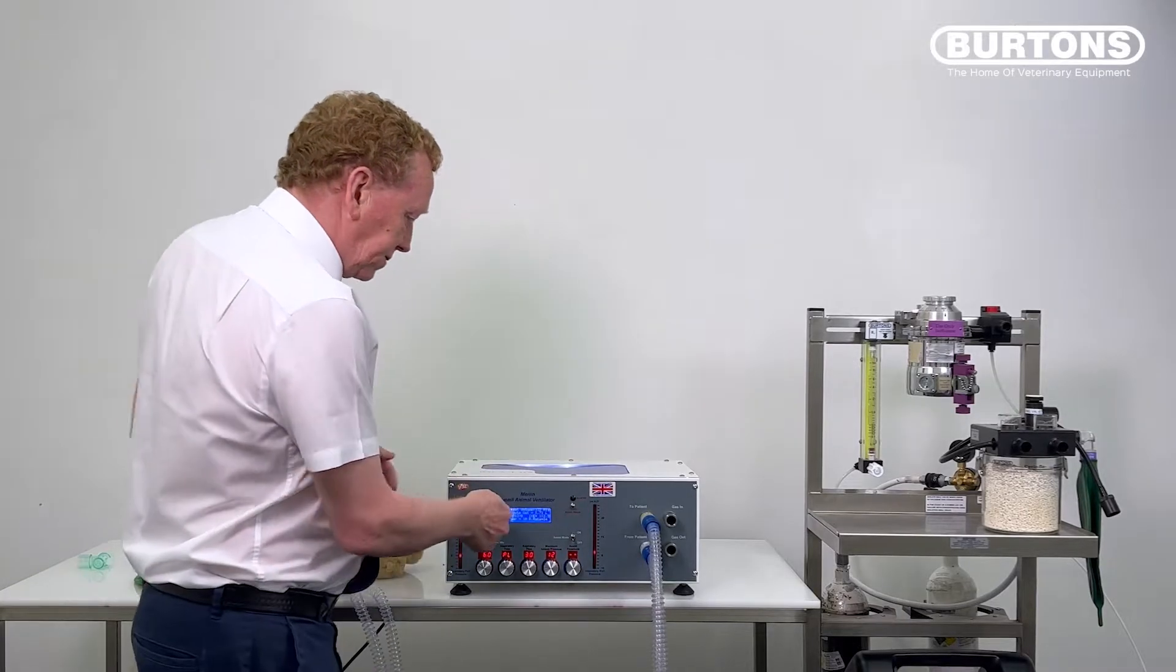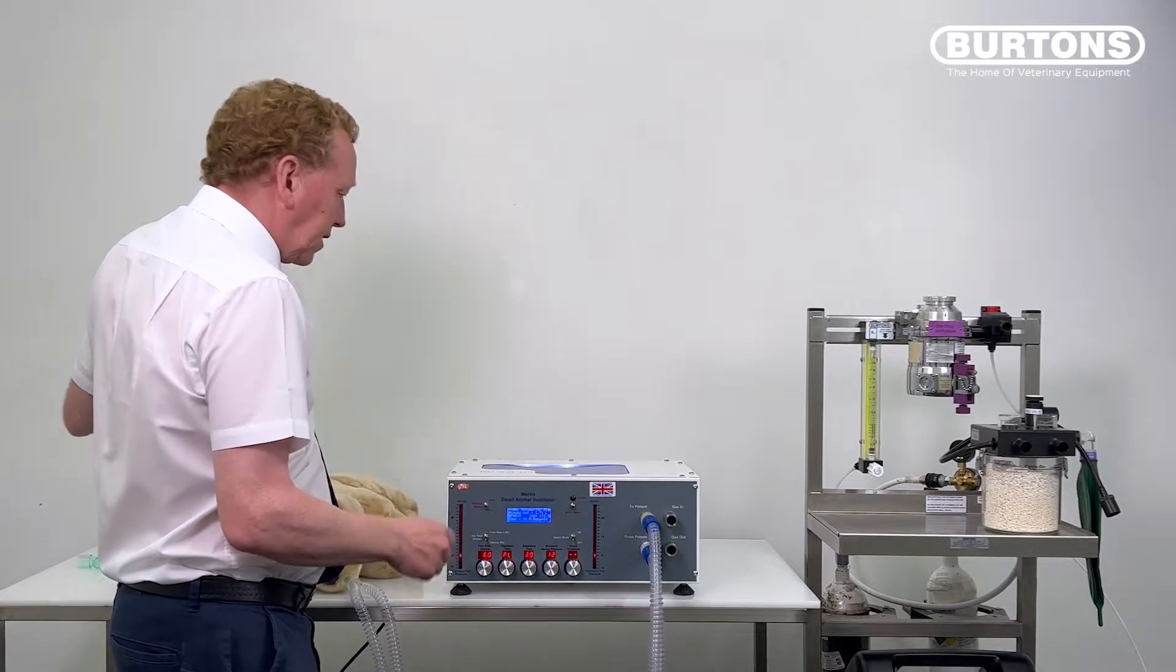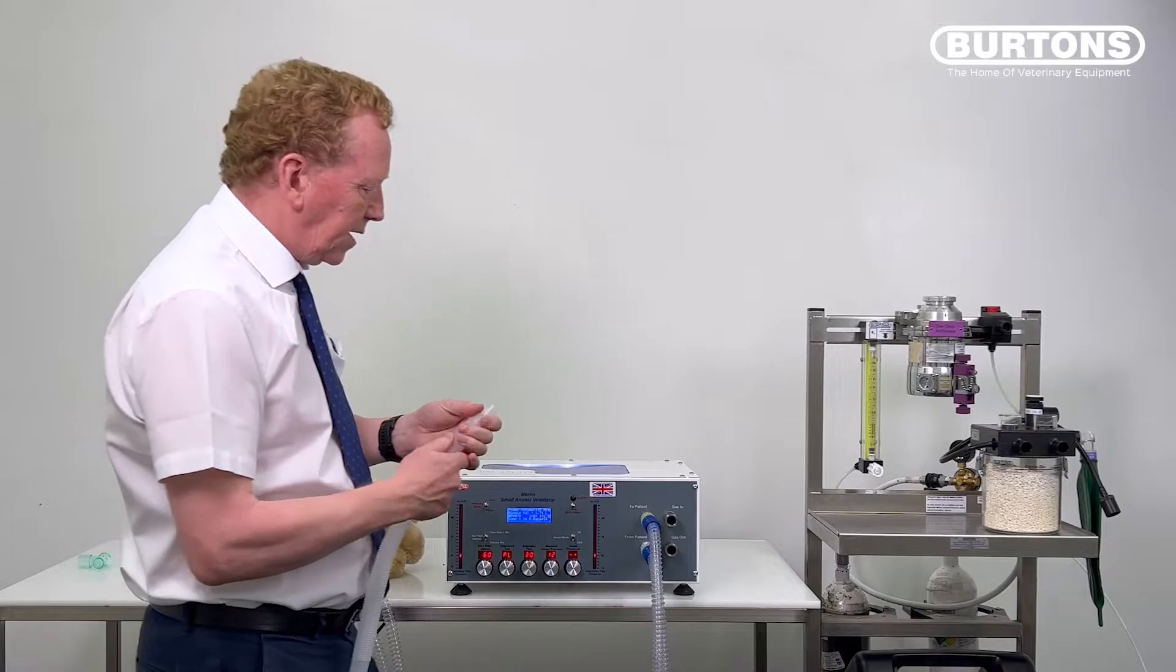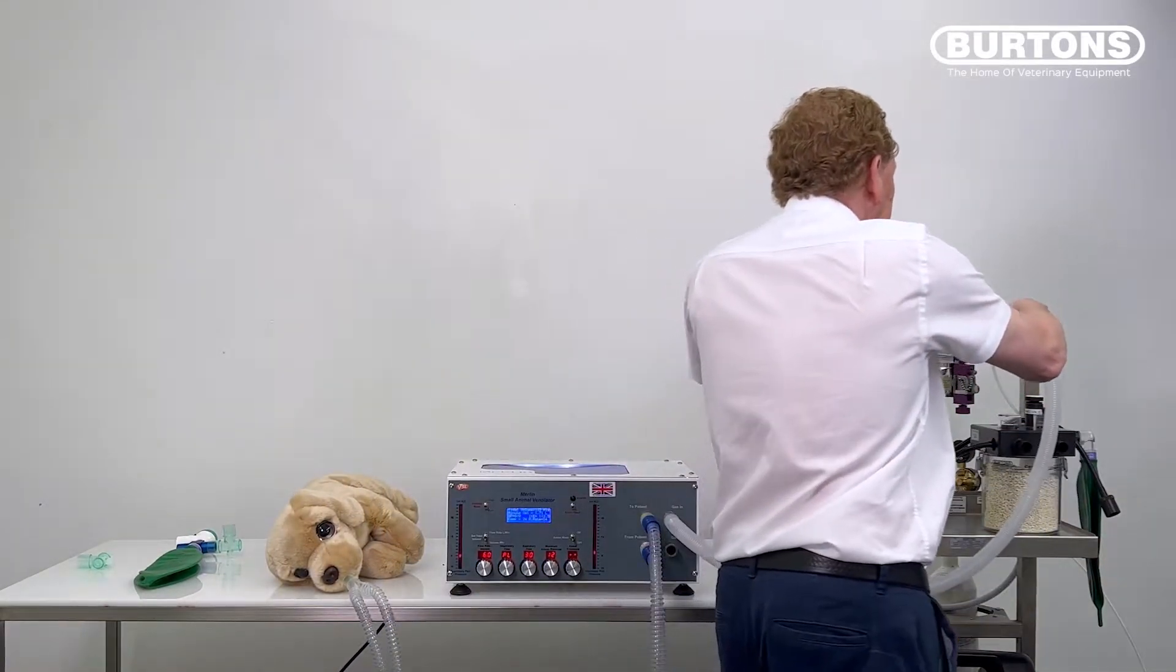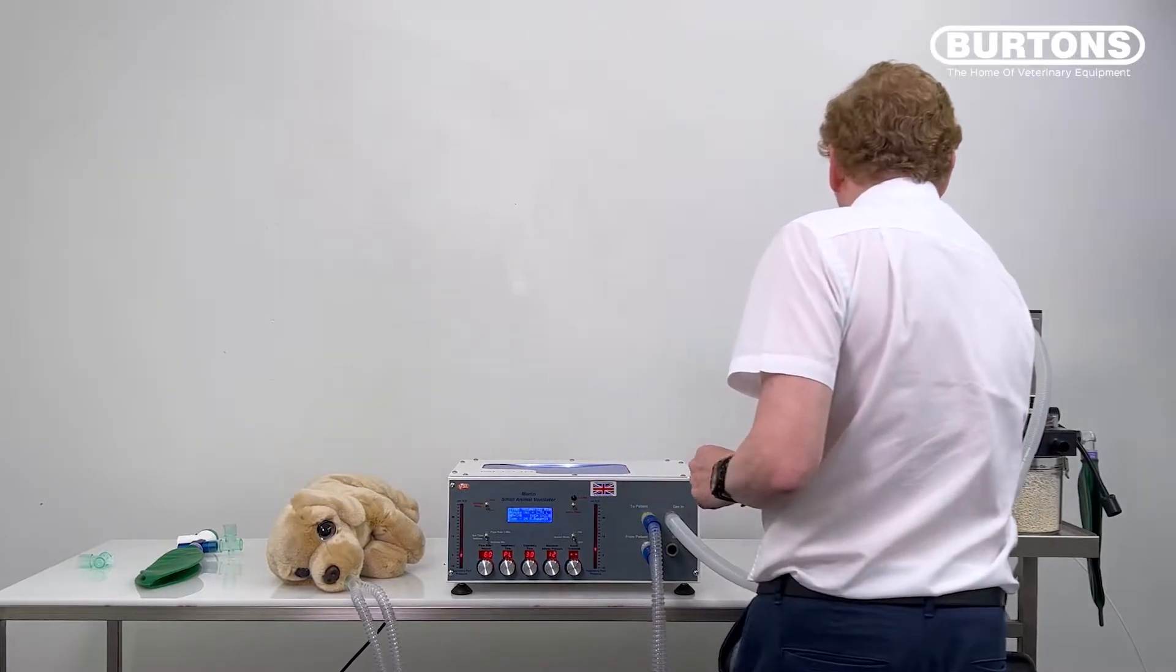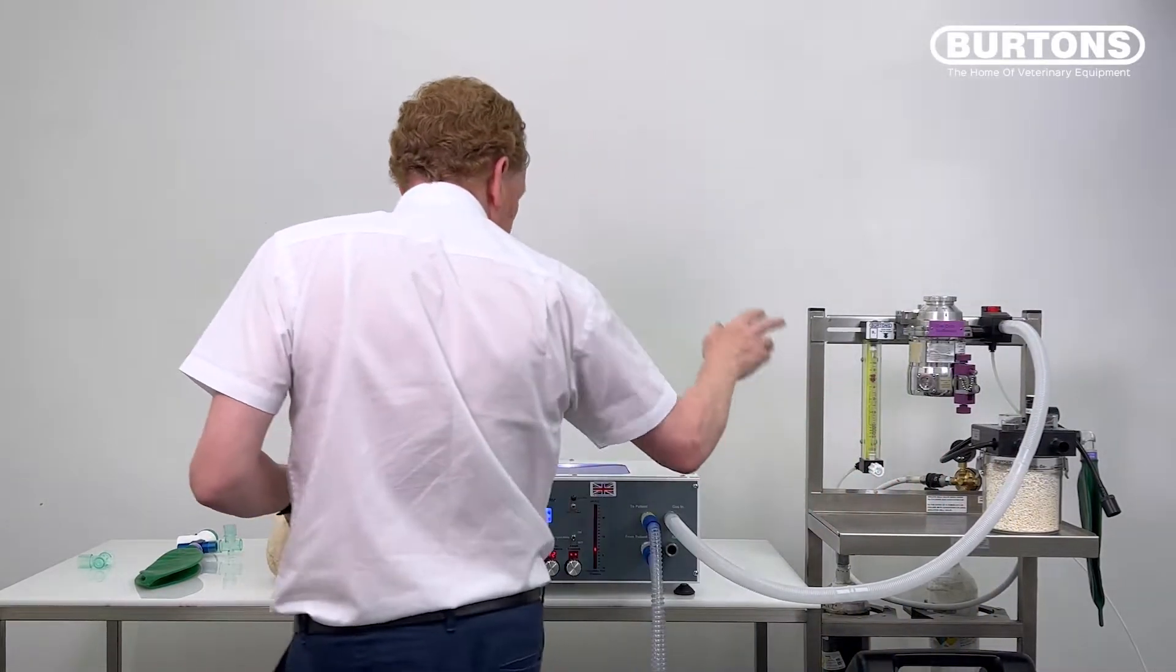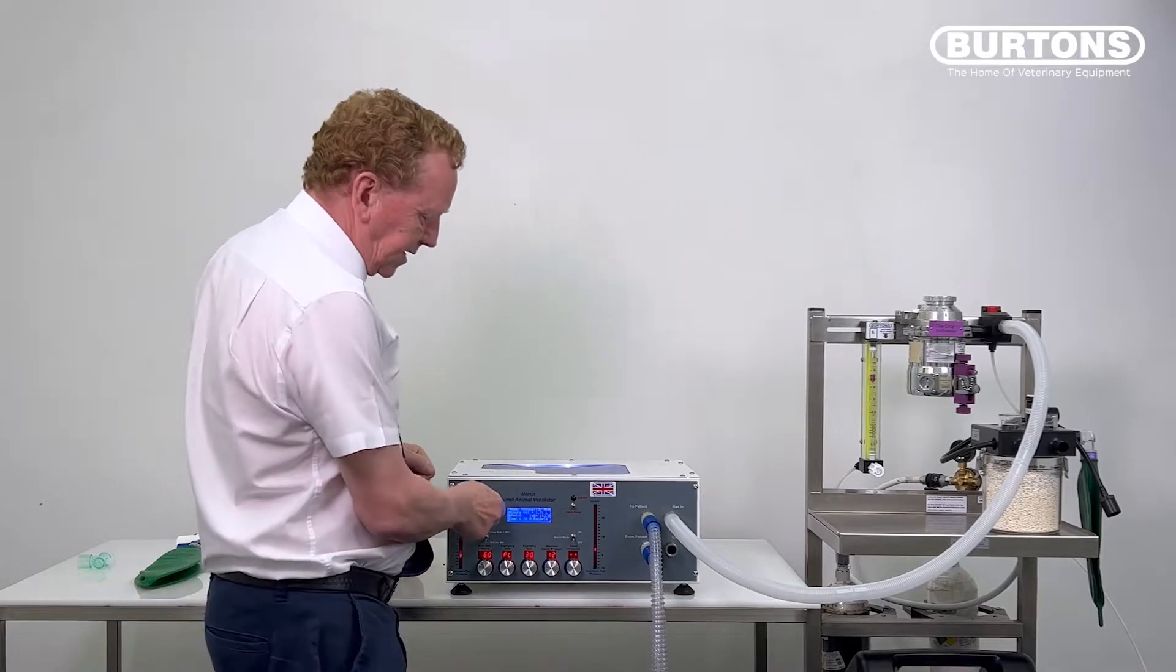But at the same time as I say, it's going to cut it off. So I'm just going to turn that off. And I'm going to feed some fresh gas direct from the fresh gas flow from the anaesthetic machine in here. It's a non-rebreathing system, so I'm going to put the fresh gas flow quite high. I'm just going to set this running.